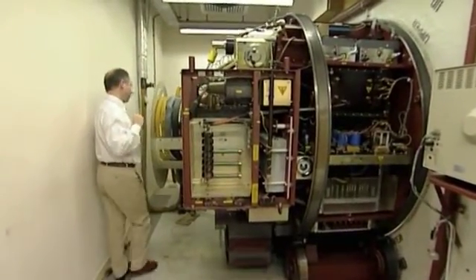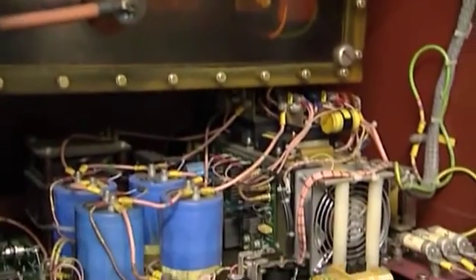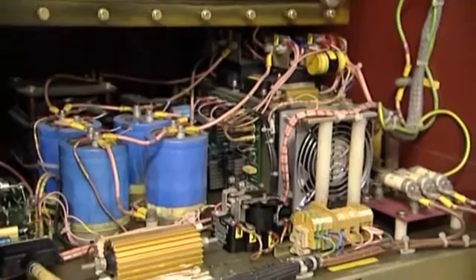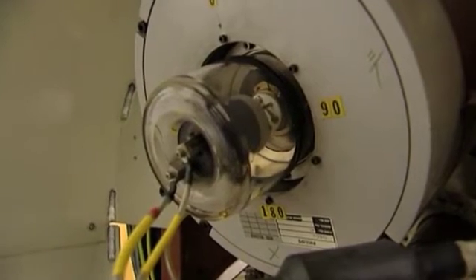Quality assurance has to look at all aspects of a machine. We have to look at the mechanical aspects, the electrical and electronic aspects, and very particularly we have to look at the beam parameters.